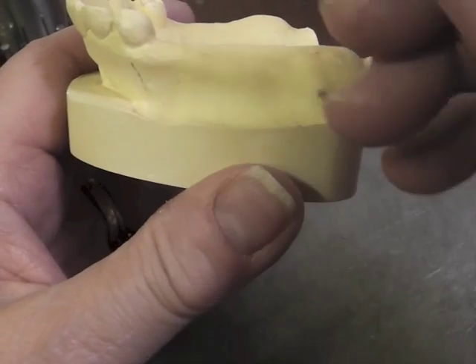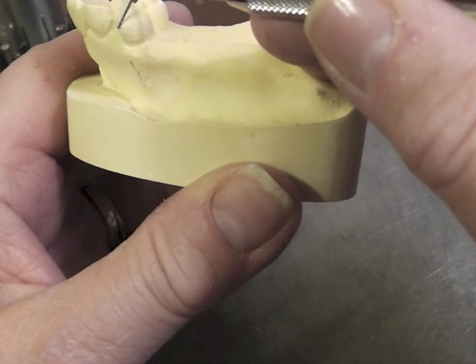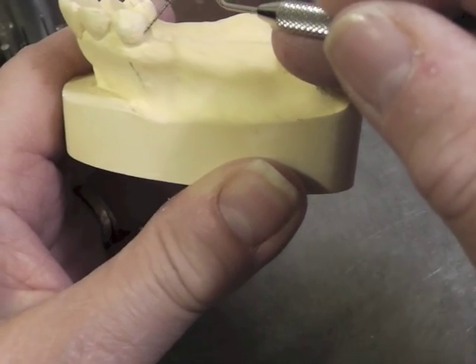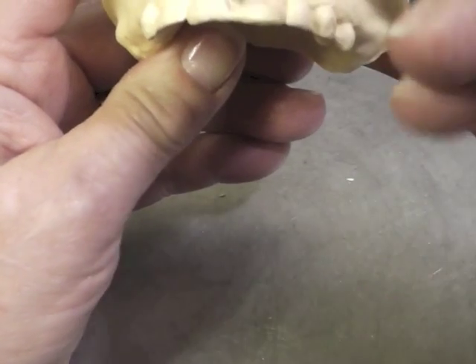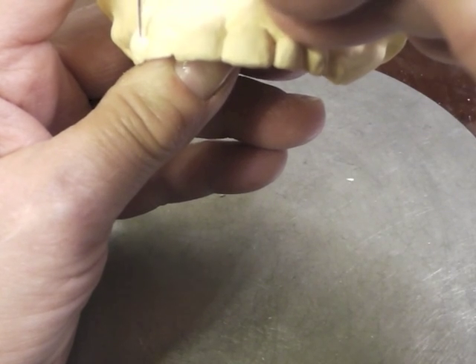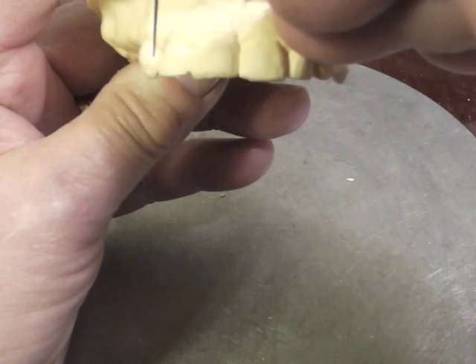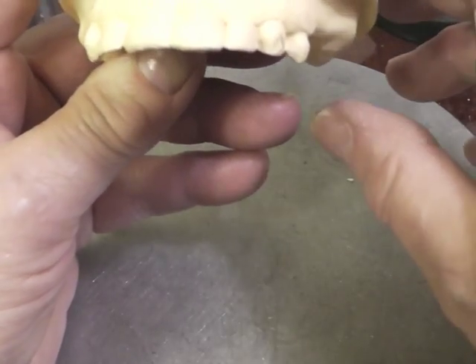Our other choice would be if we wanted to come back this way and grab a distal facial undercut. However, we do not use that reverse circlet clasp on the canines or even the premolars on a maxillary arch, because you would have this arm coming down in this direction and it would be quite unaesthetic.